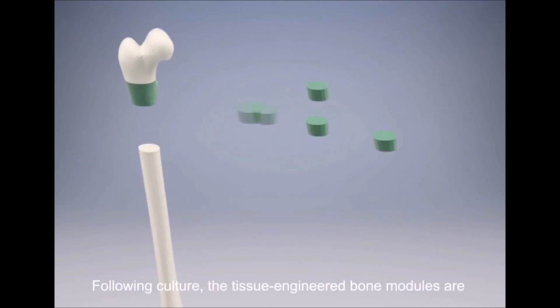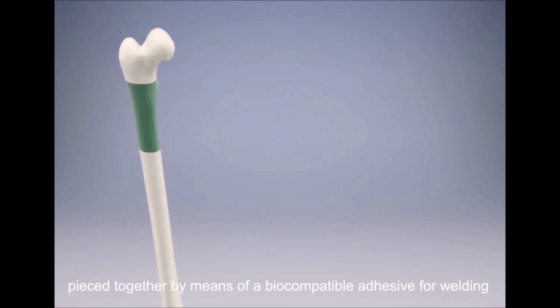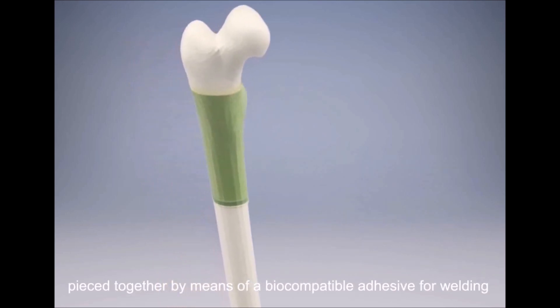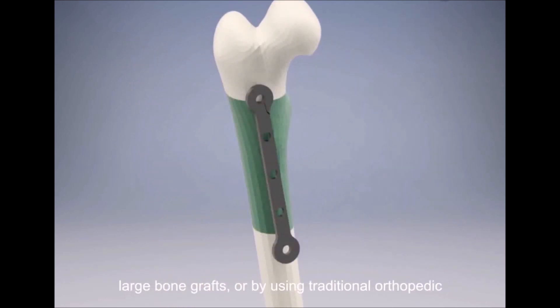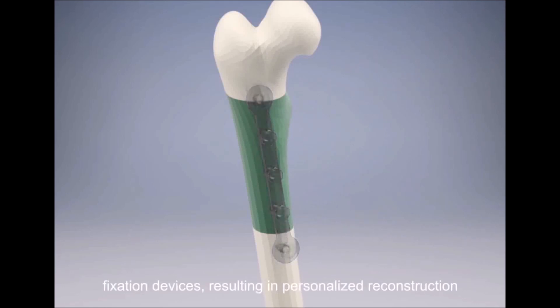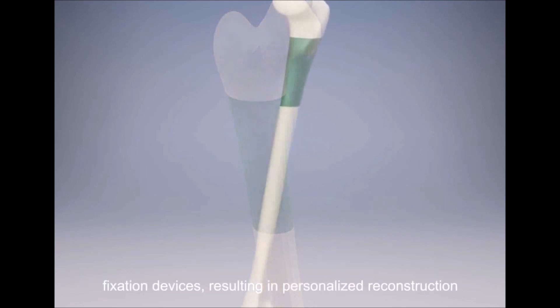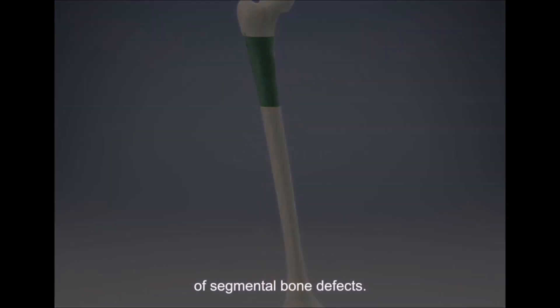Following culture, the tissue-engineered bone modules are pieced together by means of a biocompatible adhesive for welding large bone grafts, or by using traditional orthopedic fixation devices, resulting in personalized reconstruction of segmental bone defects.